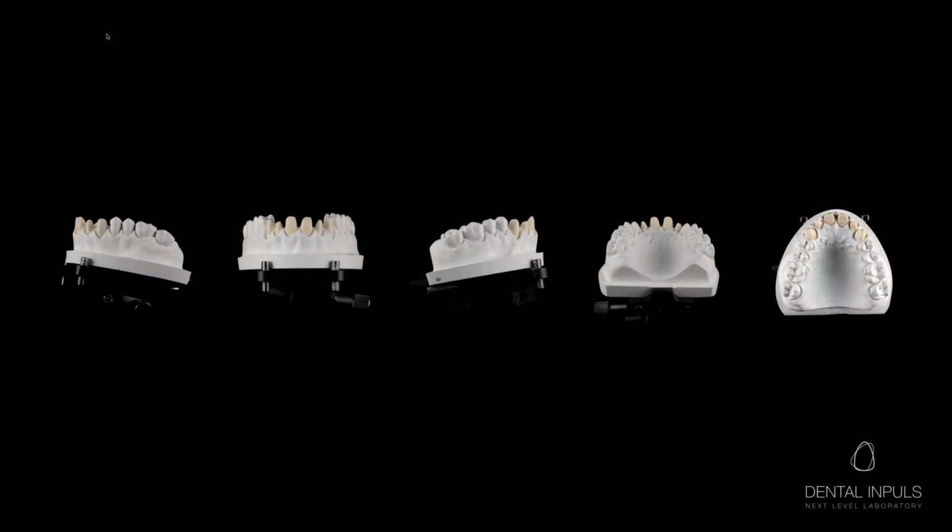We need that stump to give support in color, so our final restoration doesn't end up looking too translucent or too gray. Through this preparation, we need to keep matching value of our future restoration. This is one of the most important points to have before beginning to work with this kind of zirconia. So if you cannot meet most of these criteria, better use another material.